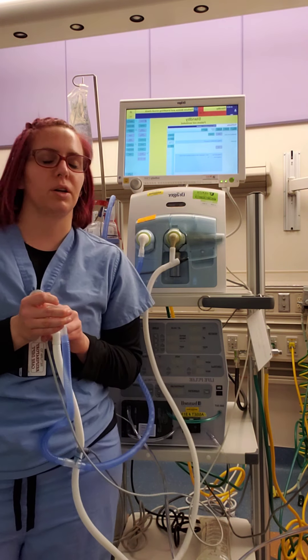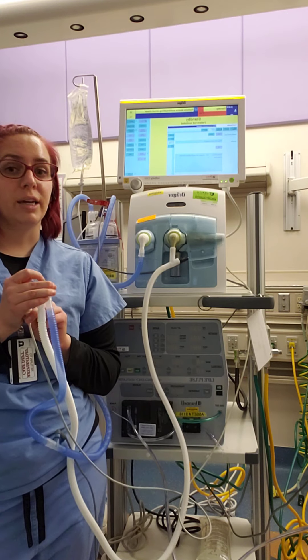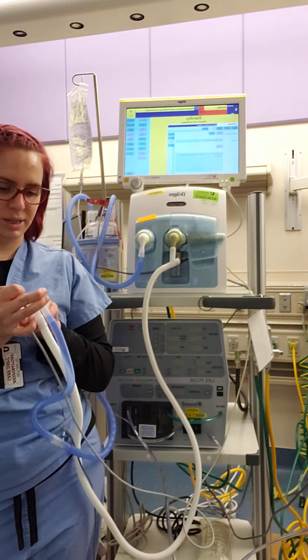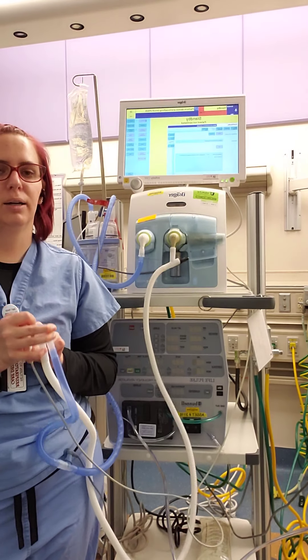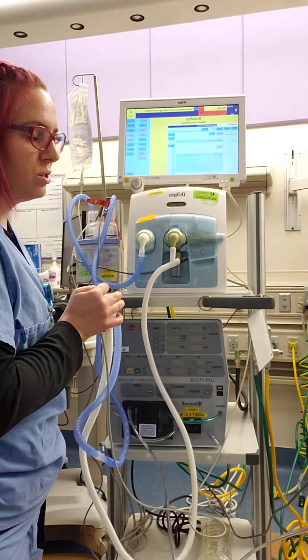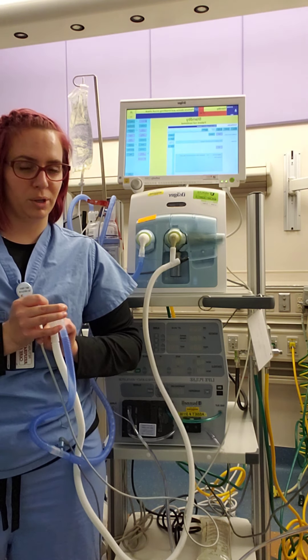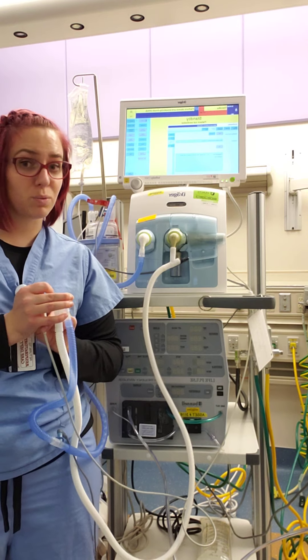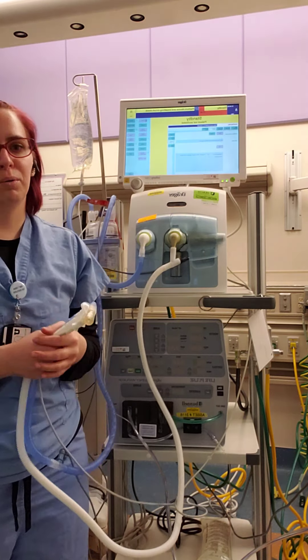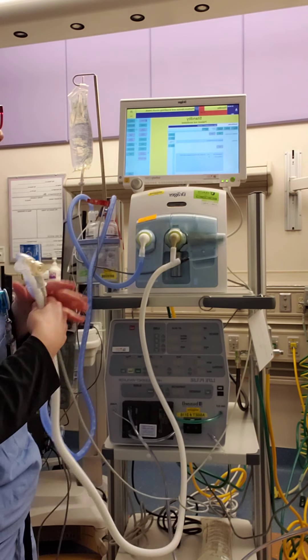A couple other considerations about the jet: because of the passive exhalation, you can administer surfactant via PPV and then place the baby on the jet, but you can't give surfactant and instill it into the lungs as you can with an oscillator. Because of that passive exhalation, it helps get air and pressure below obstructions and move it up and out — that's why it's indicated for meconium aspiration. However, the jet would just take all the surfactant and bring it up and out of the lungs.